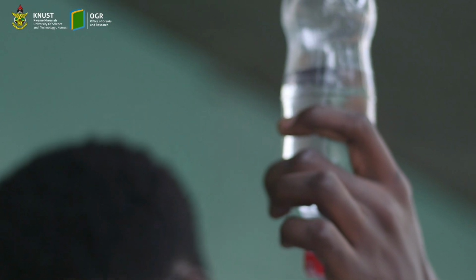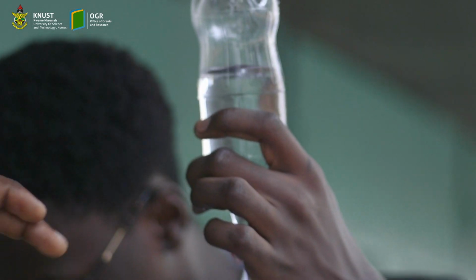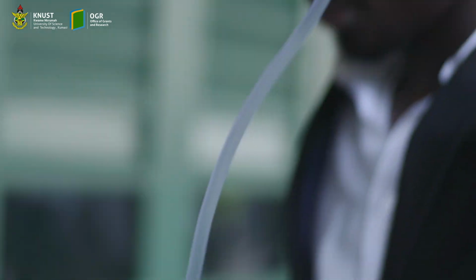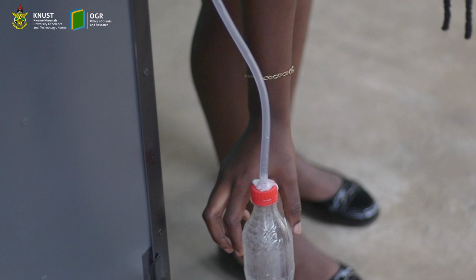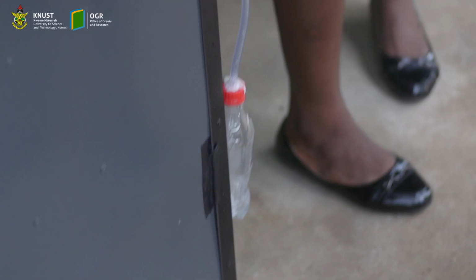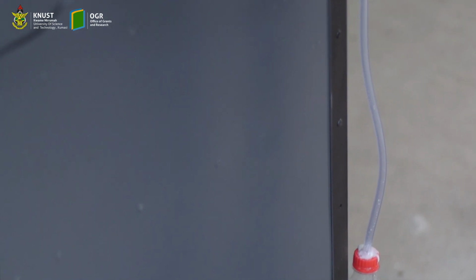So here we are performing the rinse. As we pass the dialysate from the dialysate bag, there is a motor in here. For the traditional one, we use gravity for the drain, but here we are employing a pump. As you can see, as the water goes in here, it is drained out here by the pump in the machine, which in turn speeds up the whole process.